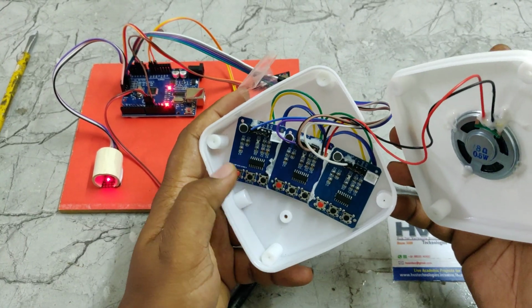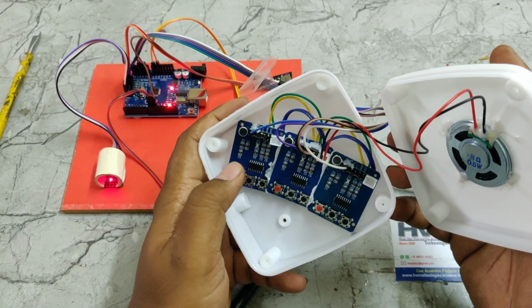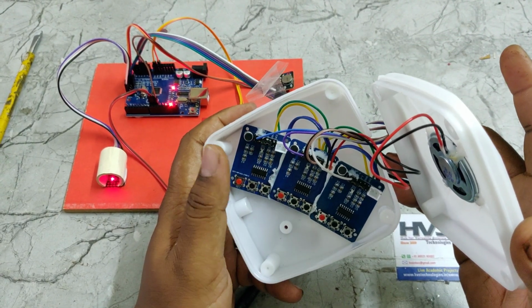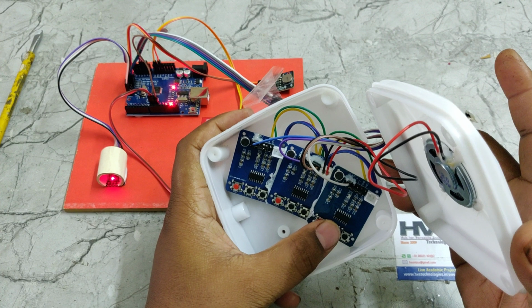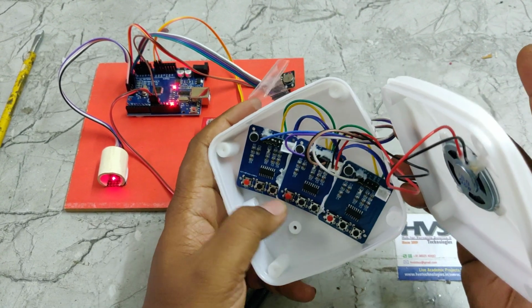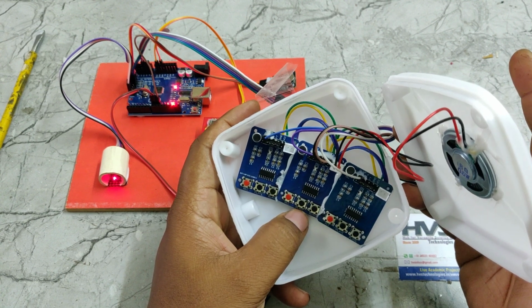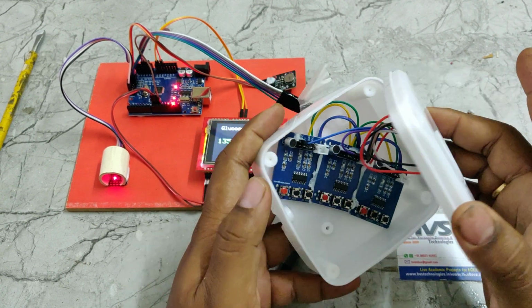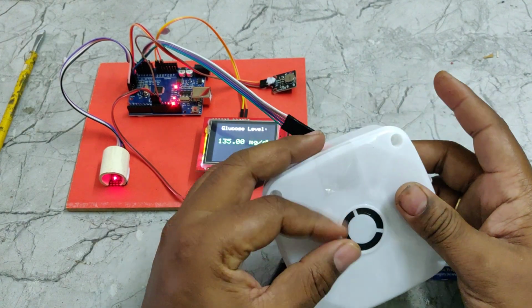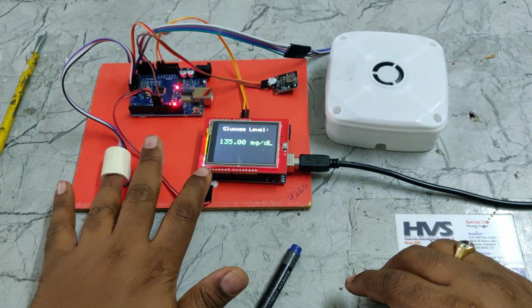After we record successfully, you can check with the middle button. Red button for recording. Middle button, there's a play icon there, to play the voice for checking. Once you confirm that, again gently close the box and close the system. And again you can check the output.